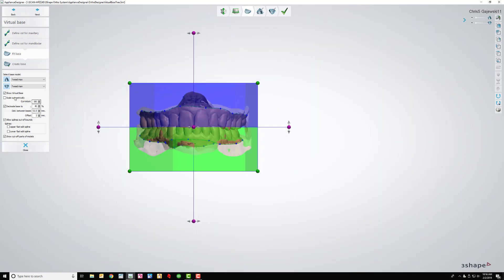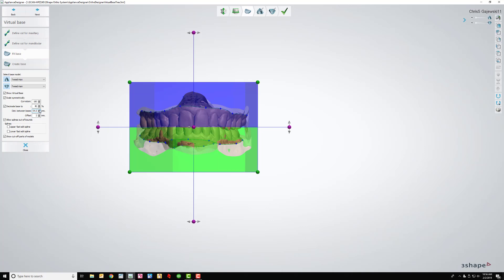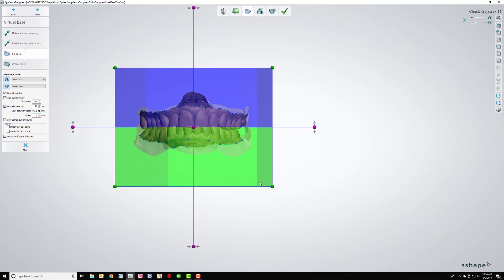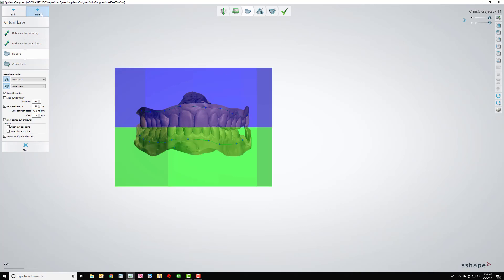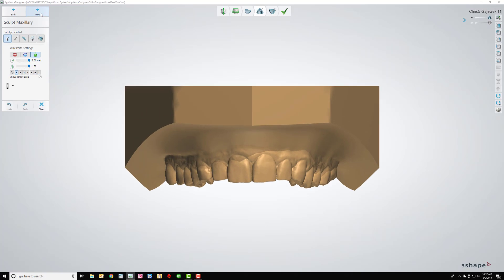So I'm not going to have to do too much touch up with them, but you can really get bad scans where they're just ugly. Fit base. Now with the new one I've got to hit this button, scale symmetrically. And what I found out that my new employee didn't know is that I can increase the base size with this. It doesn't really matter how long the base is or how wide the base is because it's all going to be cut off anyway. But I just like to make it so that it'll fit on the screen, include all the splines, and then I'm ready to go into the next step, which is create base.